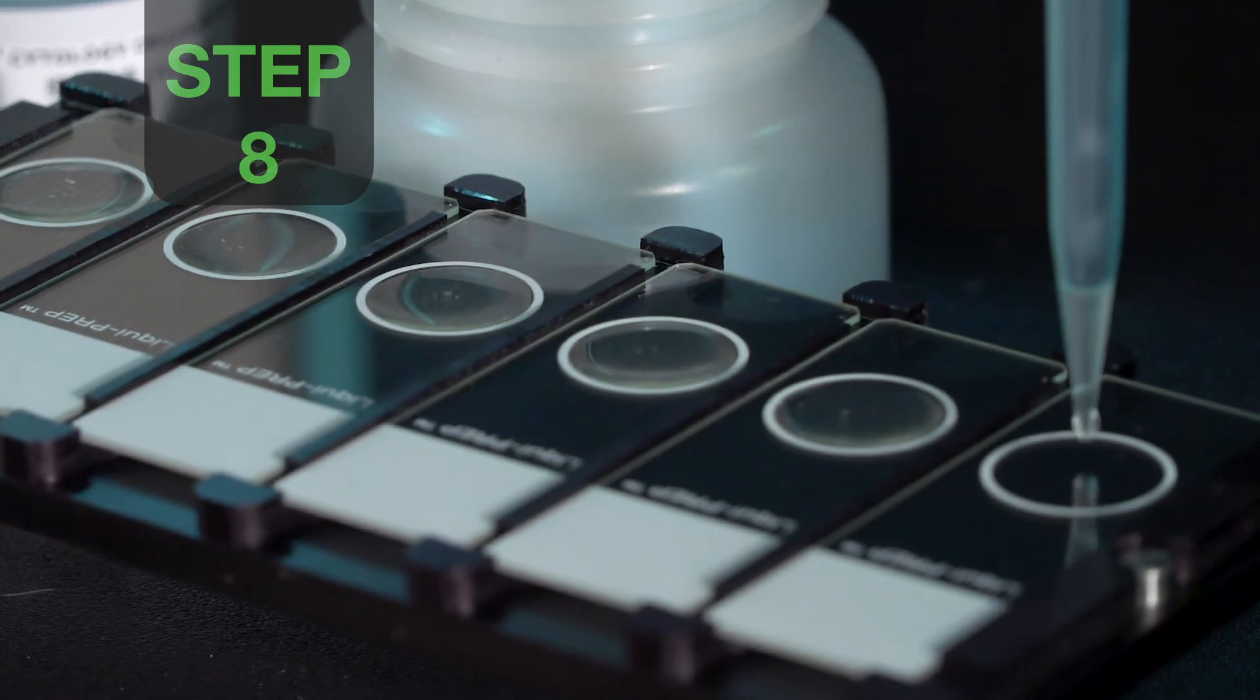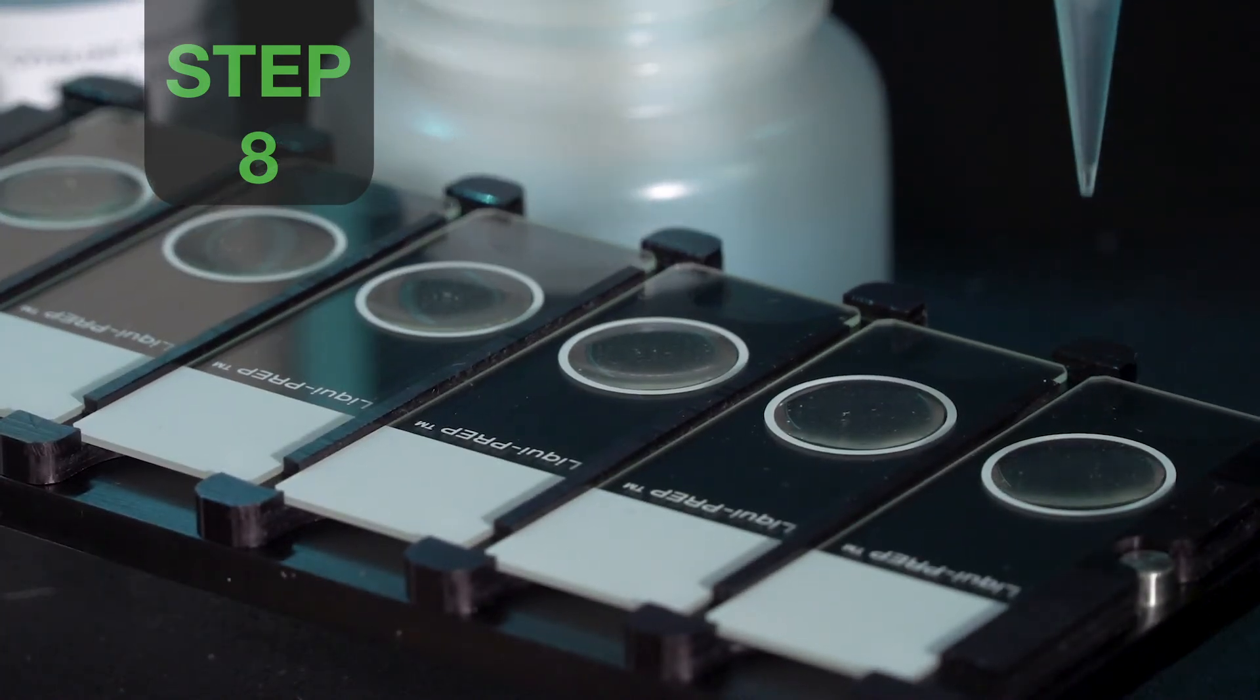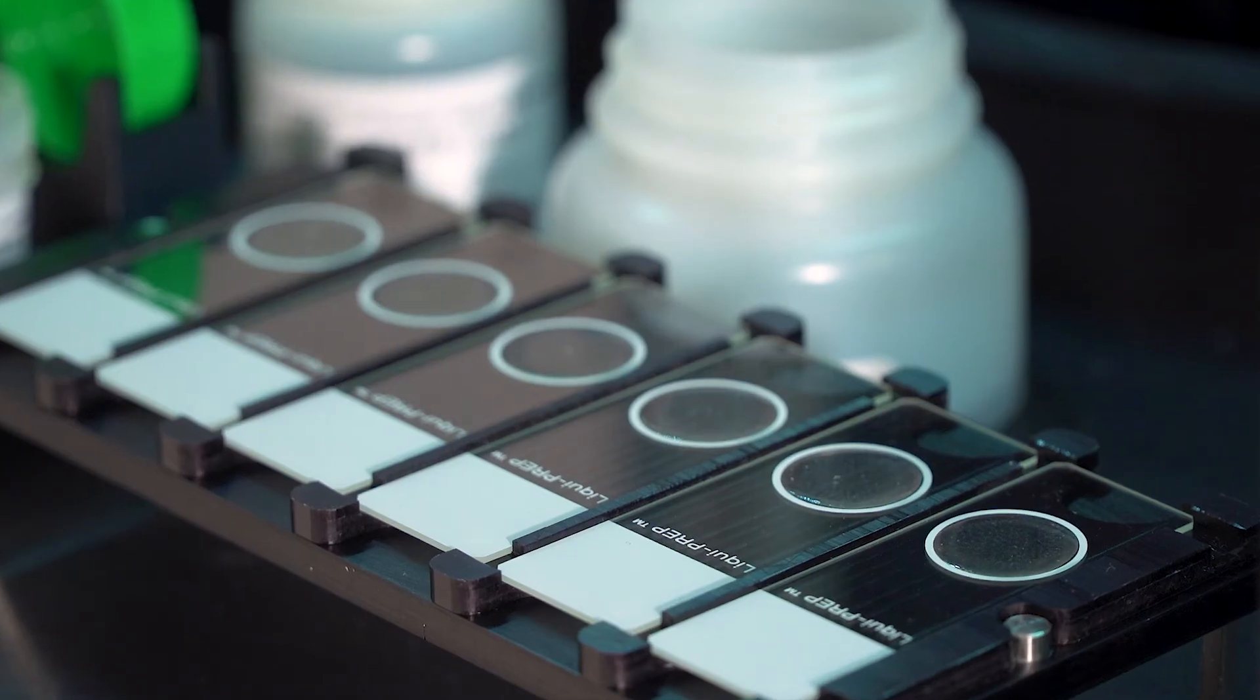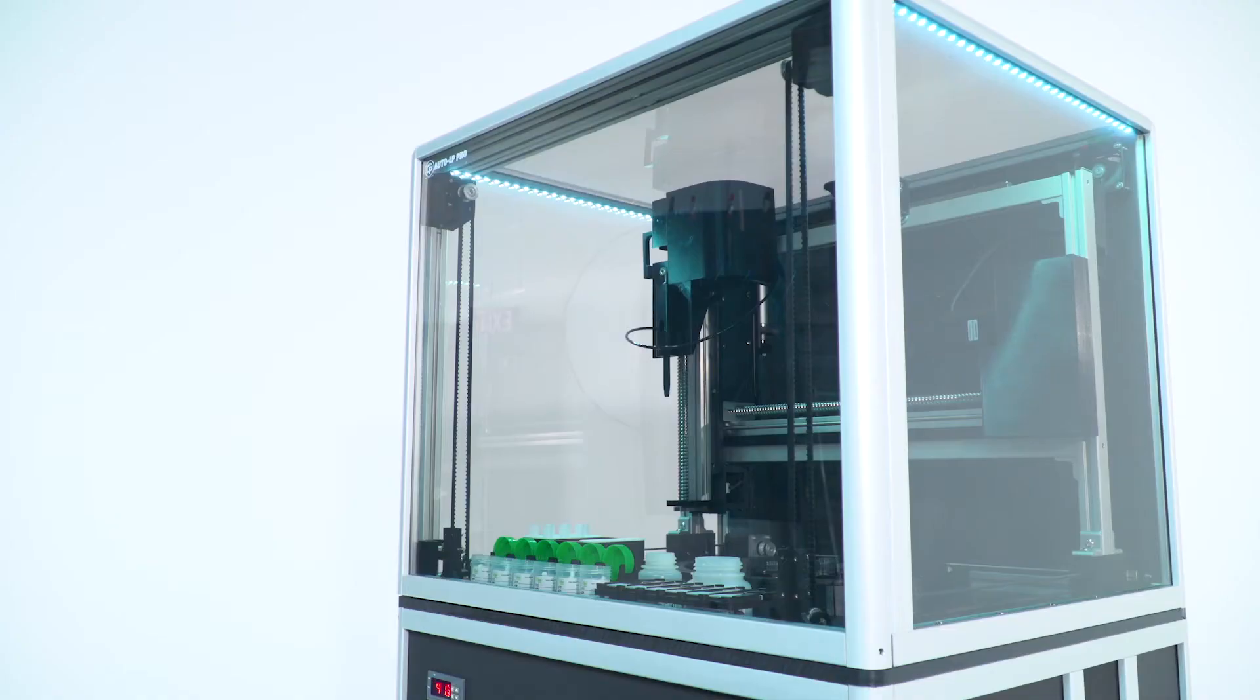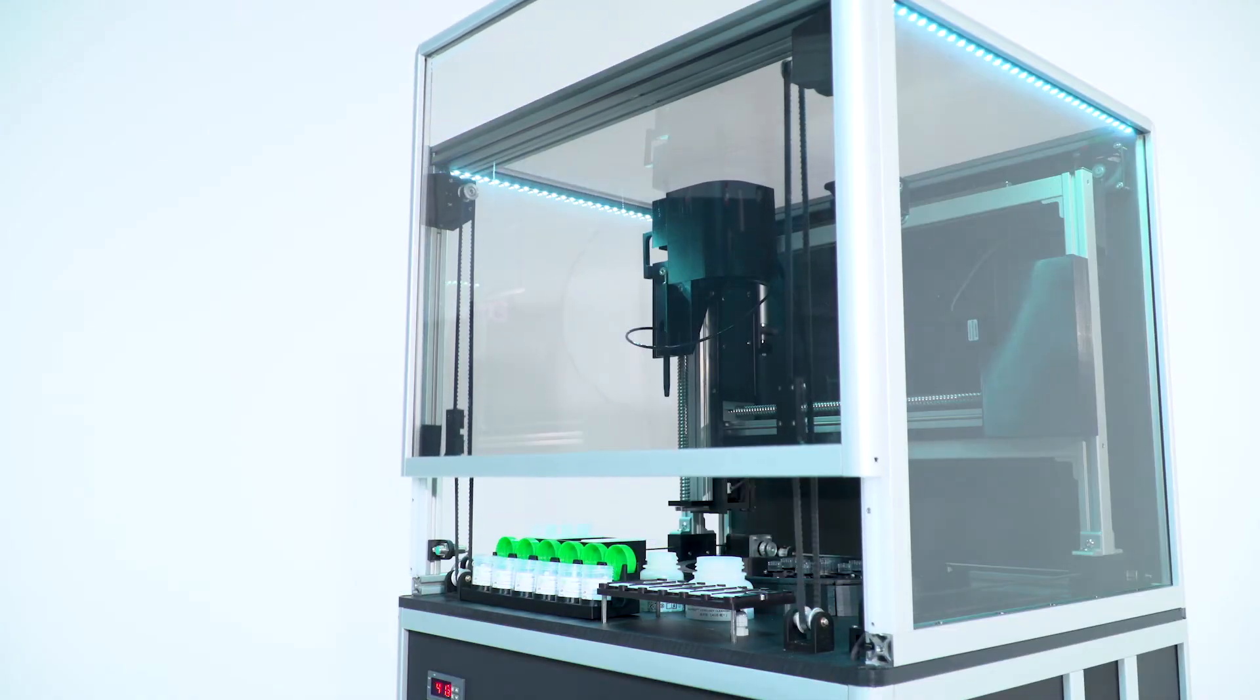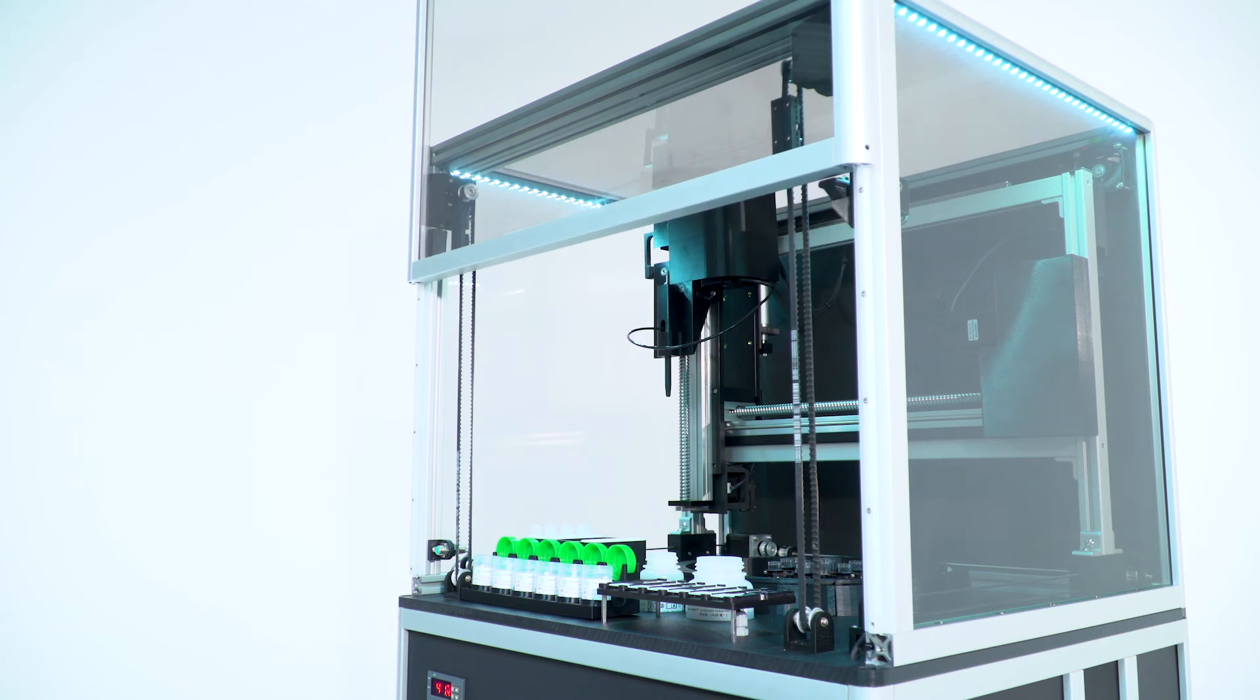Each encapsulated sample is inoculated onto the heated microscope slide. When all specimens are completed, the AutoLP Pro opens the processing door, notifying the user that the run is complete.